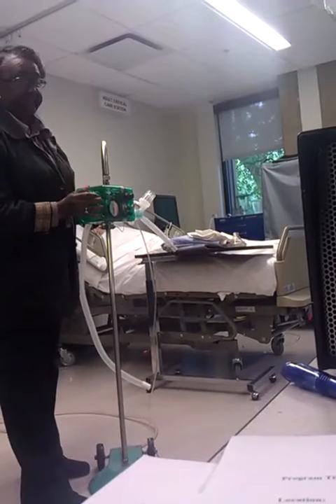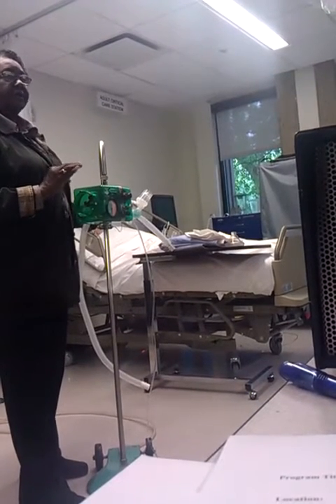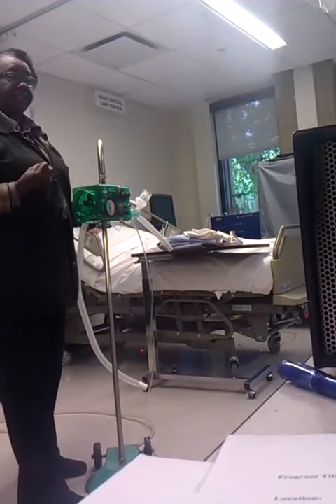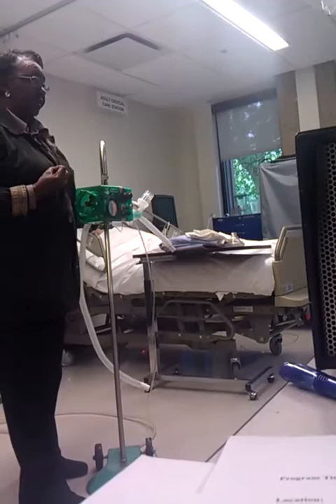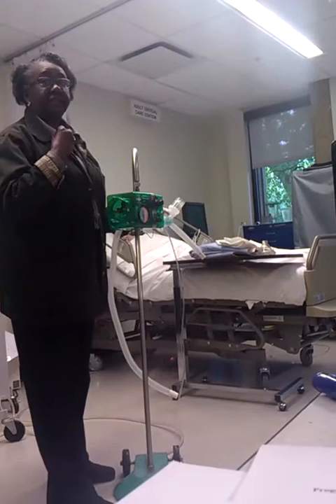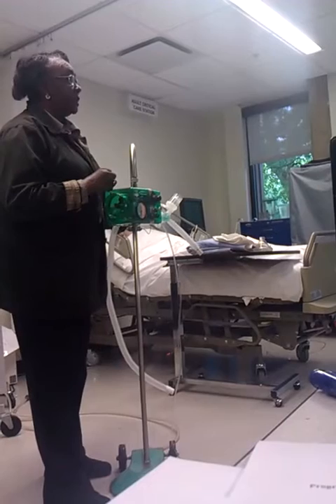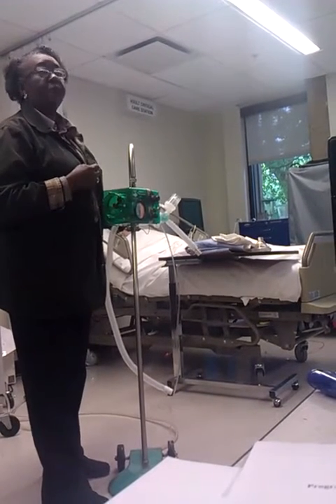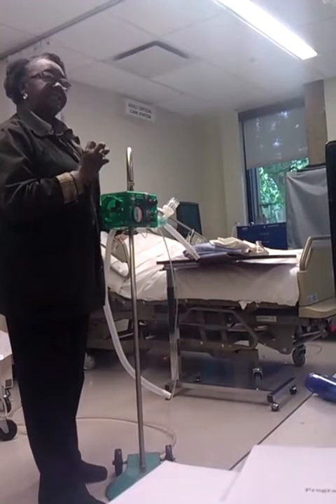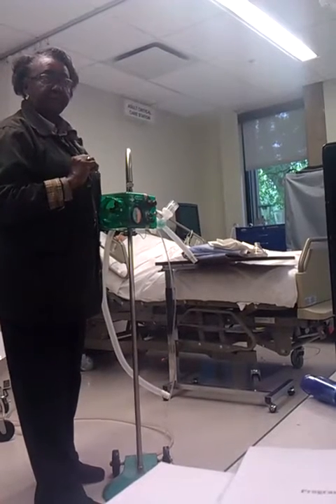You have a sensitivity device. Sensitivity is how hard or how difficult you want to make it for the patient to trigger this machine and take a breath. You want to make it as easy as possible without having the machine do what they call self-cycle. If you set it too sensitive, the machine will just start going really, really fast. You don't want it to do that. But you want it easy enough so the patient doesn't have to work hard to get a breath. Because when the patient sucks in a little bit, the machine senses that and then pushes the air into their lungs. And you said, I'm sorry, you said that where?